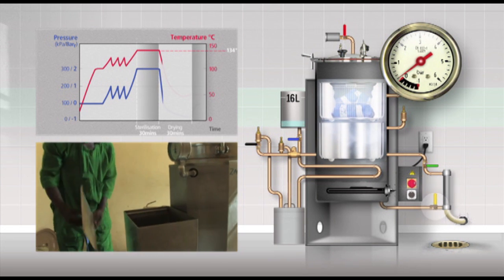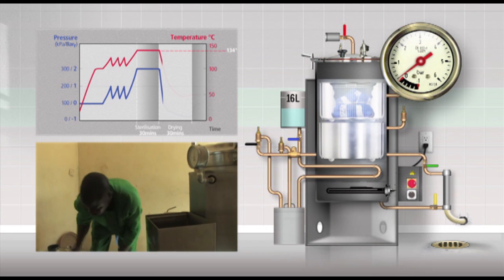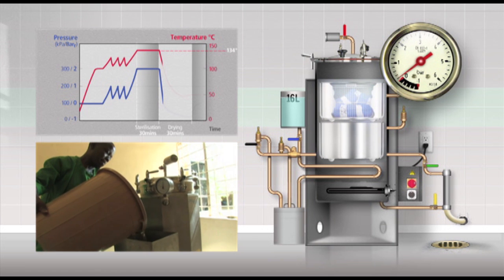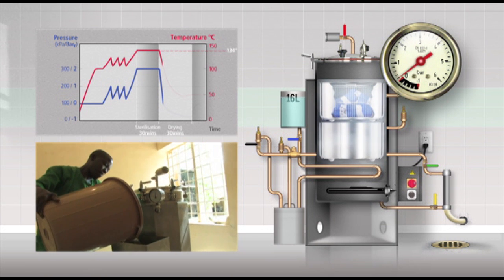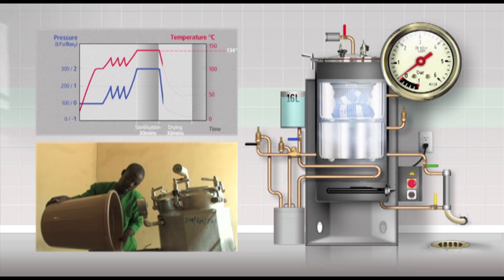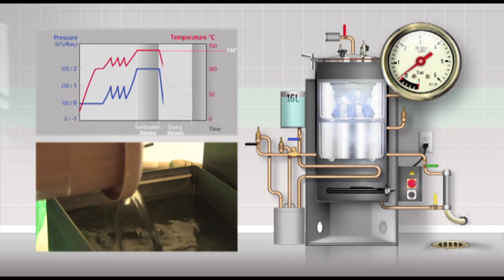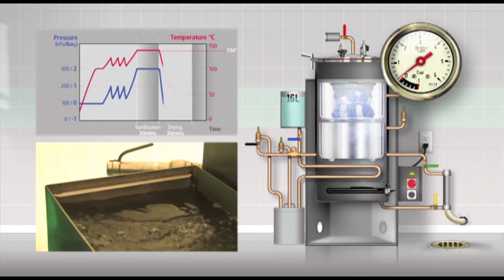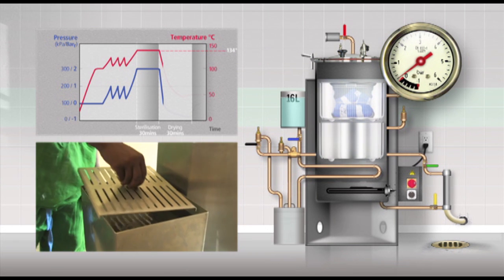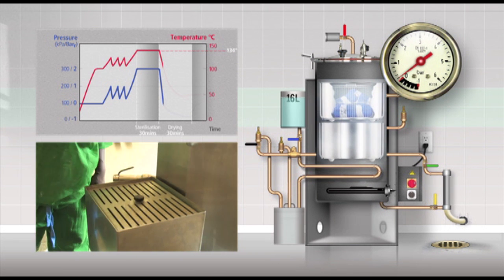Now pour cold water in the upper exterior water tank to the filling grid, approximately 16 litres. This upper tank is for the cooling water for the condenser coil in the bottom of the chamber. You can use a bucket for pouring in the water. If you have a tap for the water supply to the autoclave, open the tap and fill the water tank to the grid.